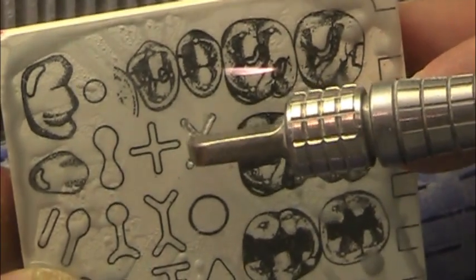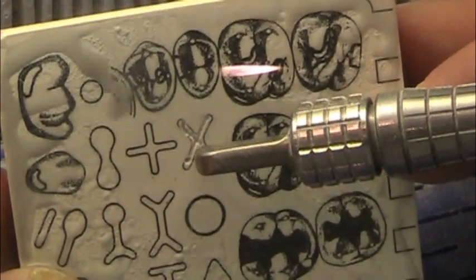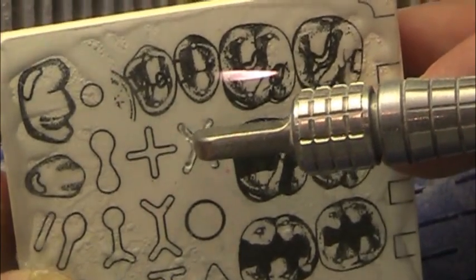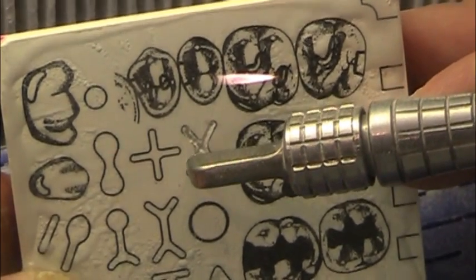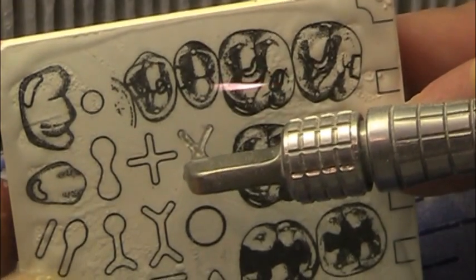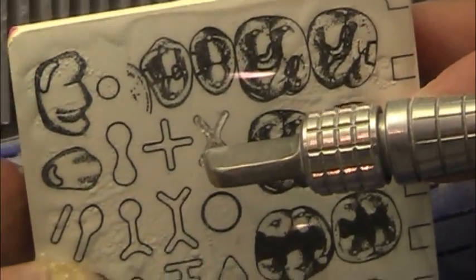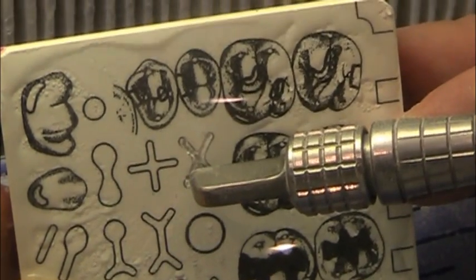I really should be angling this a little bit more to get more control. Trying to stay out of the way of the camera a little bit, but you can see the control that we have. And if I really need to, I can stand on it and blow a hole right in the ceramic block.